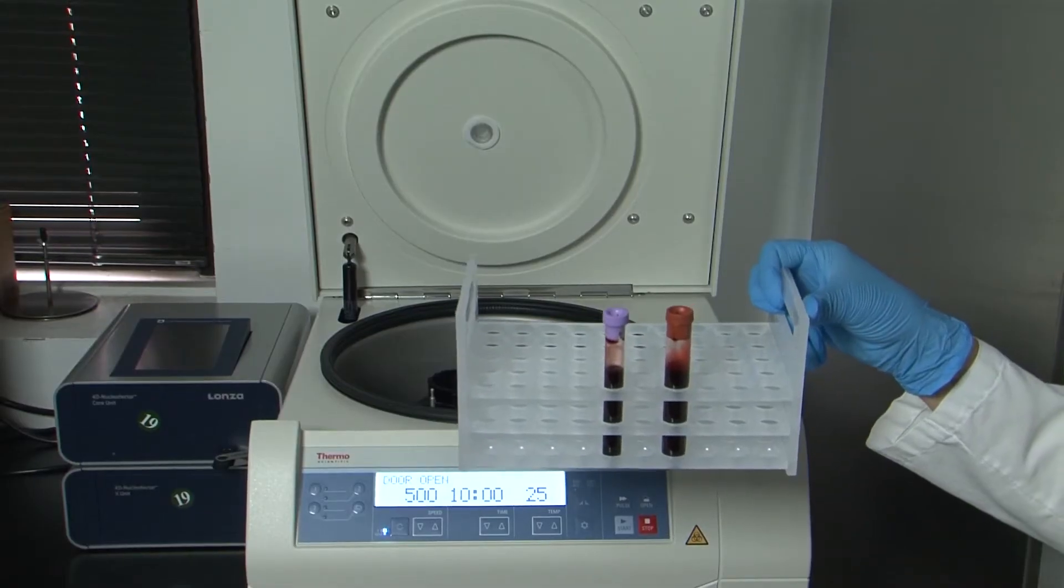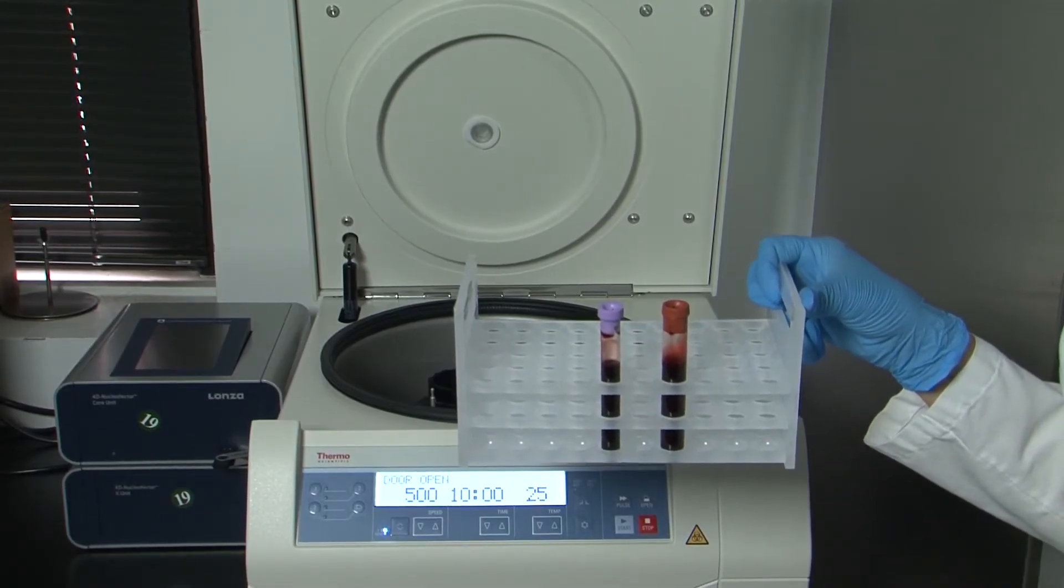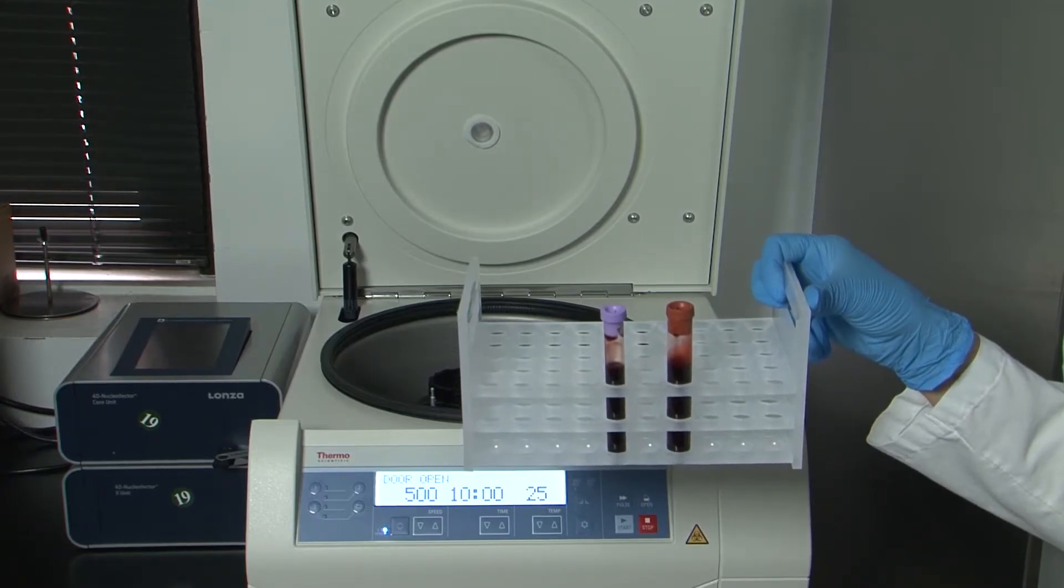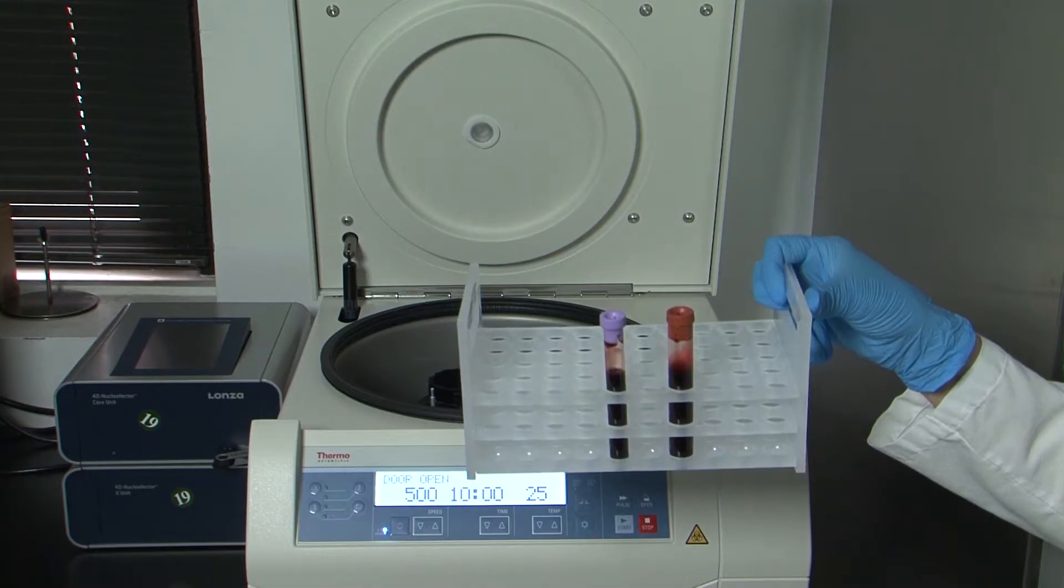We would like to request that the laboratory personnel separate the samples of plasma and serum from the lavender and red top tubes and ship them to the perinatology research branch.